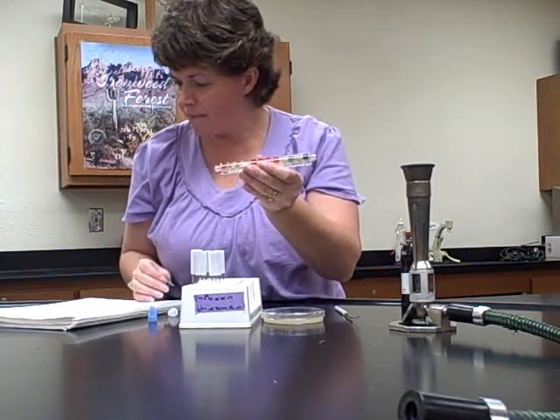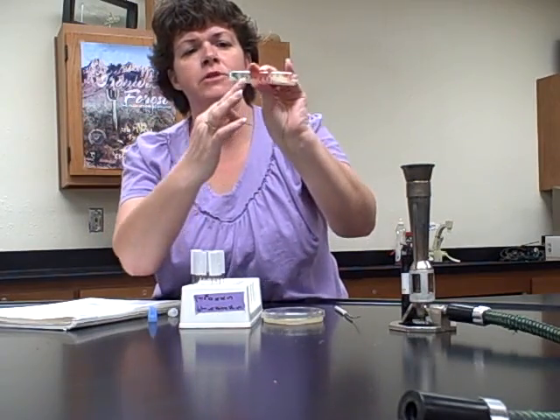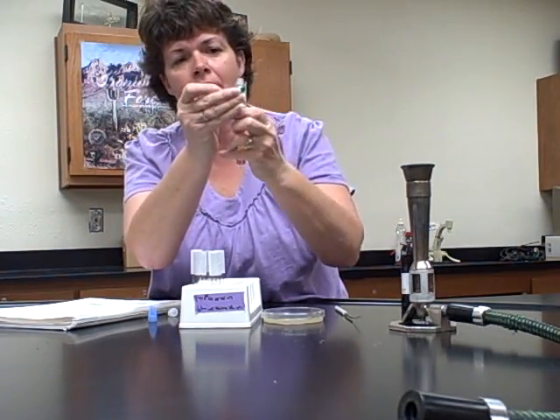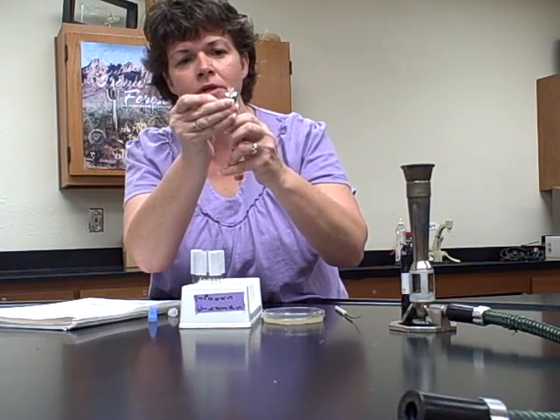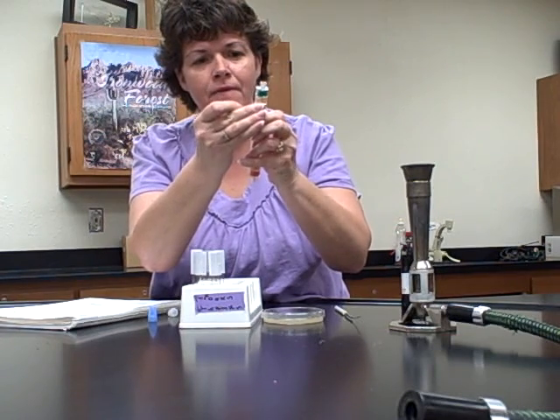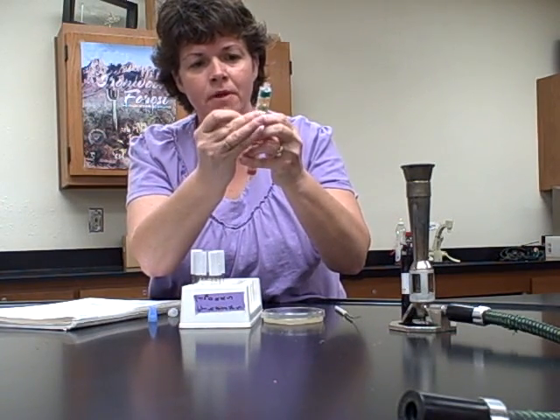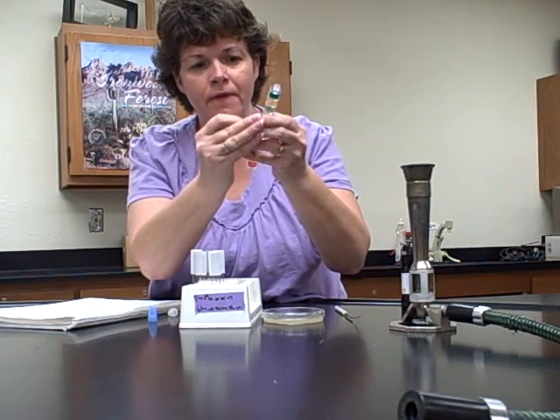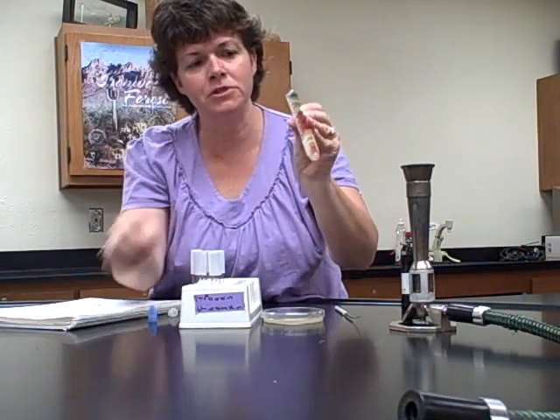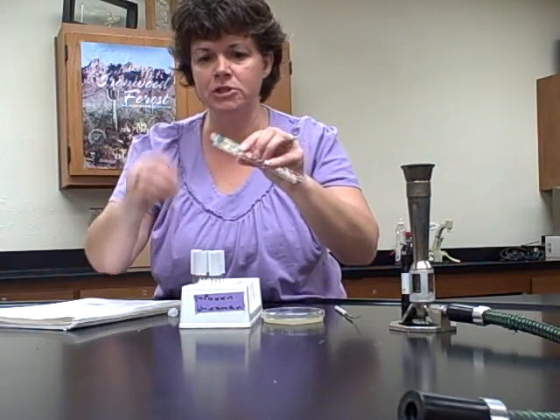Okay, with that part that you broke off, you're going to poke holes in these compartments right here that have the little notch in them. Okay, so you're going to poke a hole in the green one, and each one after that. Okay, you don't poke it in the paper on the bottom, you poke it in the side. Okay, and then you'll notice the last 4 compartments don't have those notches. Okay, and then we'd have a beaker of bleach to put that in.